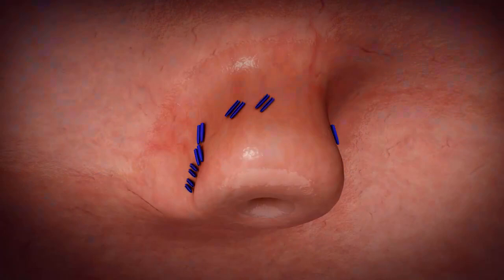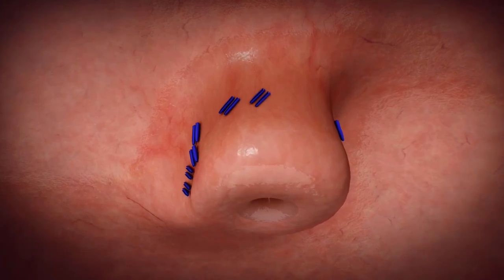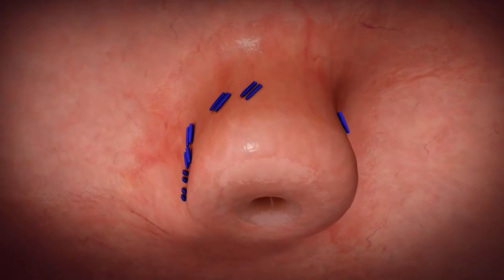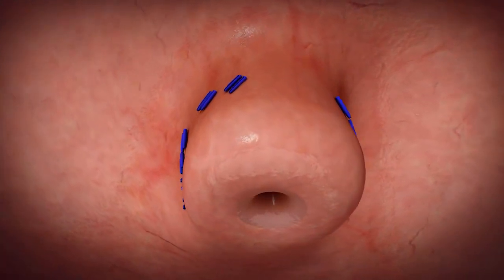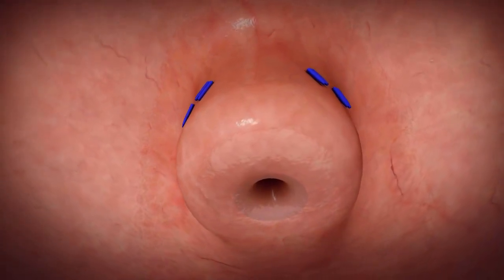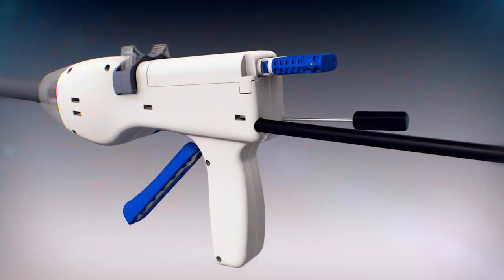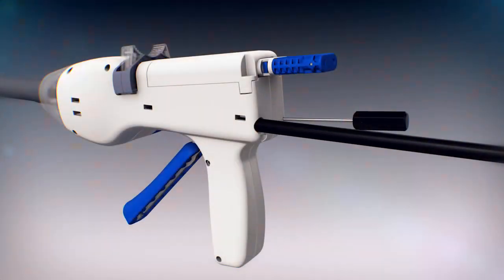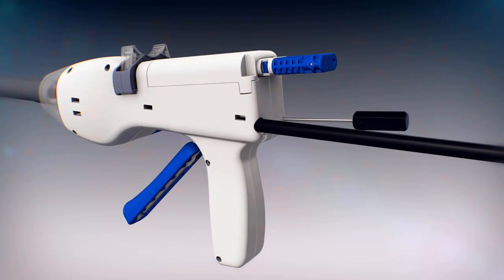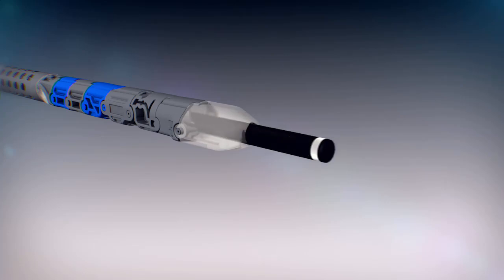The TIF procedure with EsophyX technology allows physicians to restore deteriorated anatomy, rebuilding the gastroesophageal valve from inside the stomach without incisions. A camera called an endoscope is inserted into the center channel of the EsophyX device and provides direct visualization for the TIF procedure.